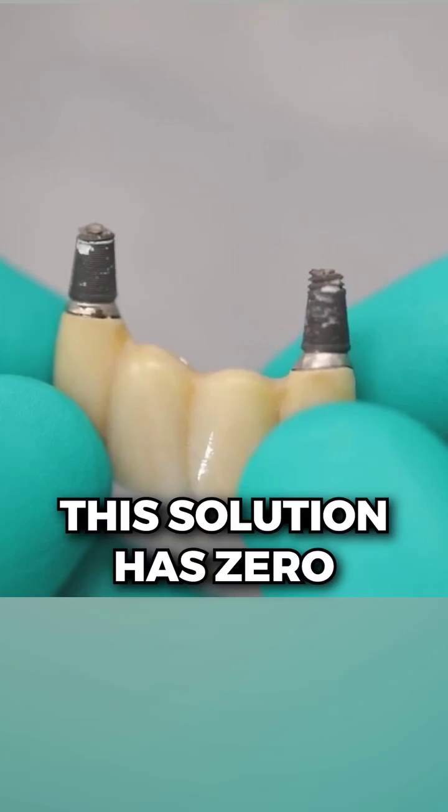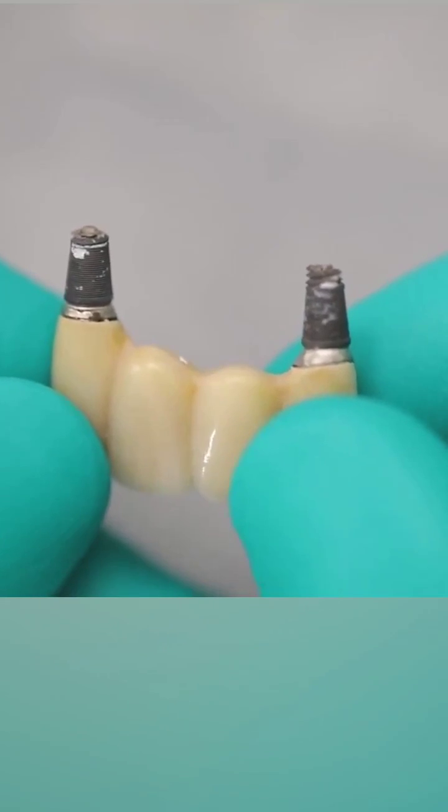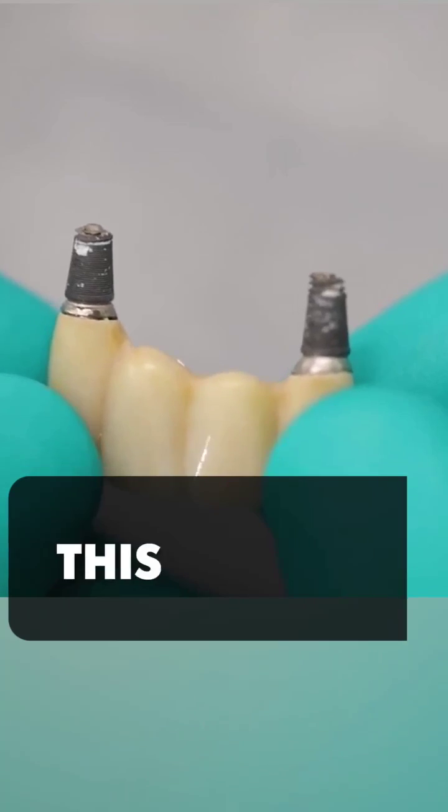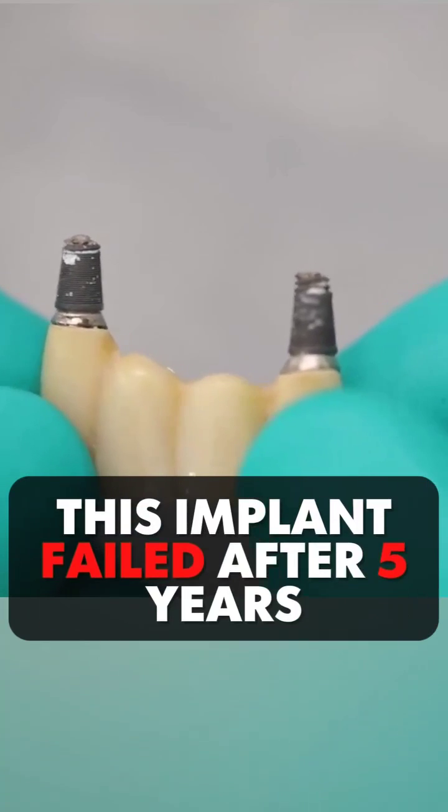Now the first one is this. This solution has zero anterior posterior spread. We have two implants in the lateral position, nothing in the centrals, and this patient wore this for five years before it failed.